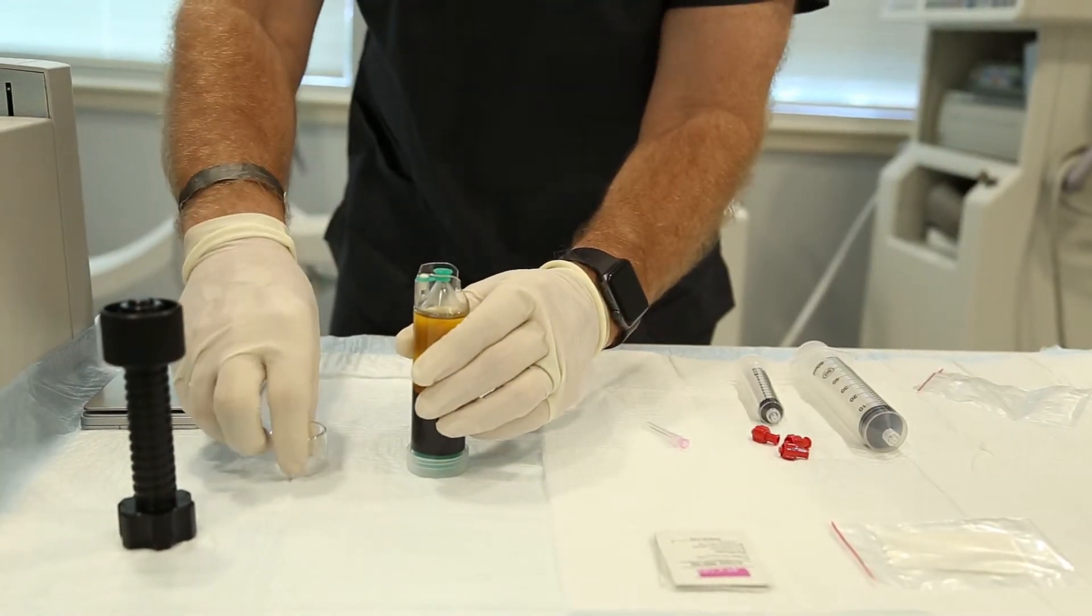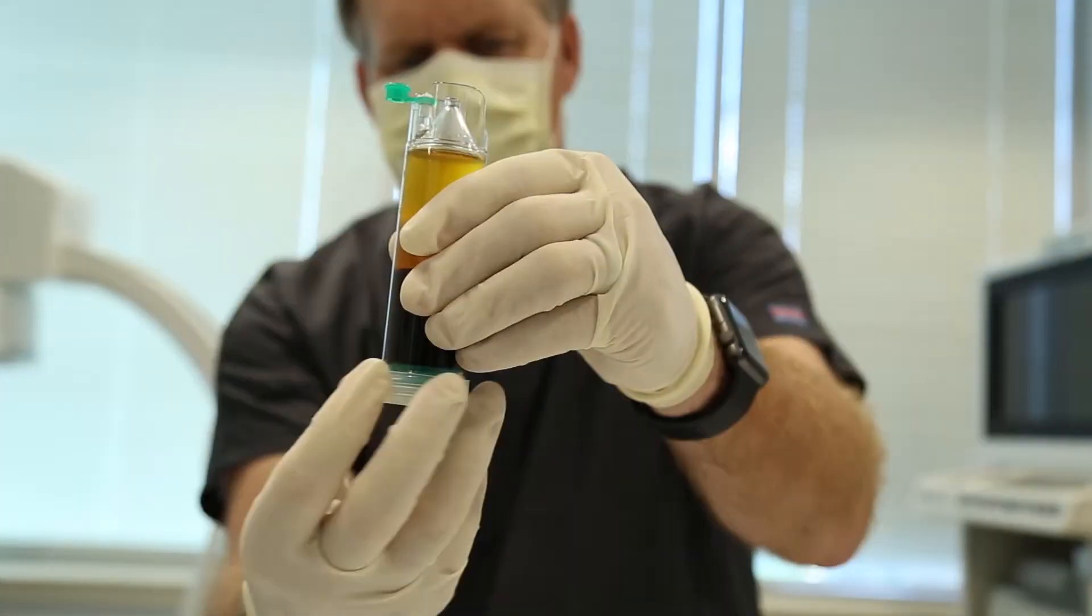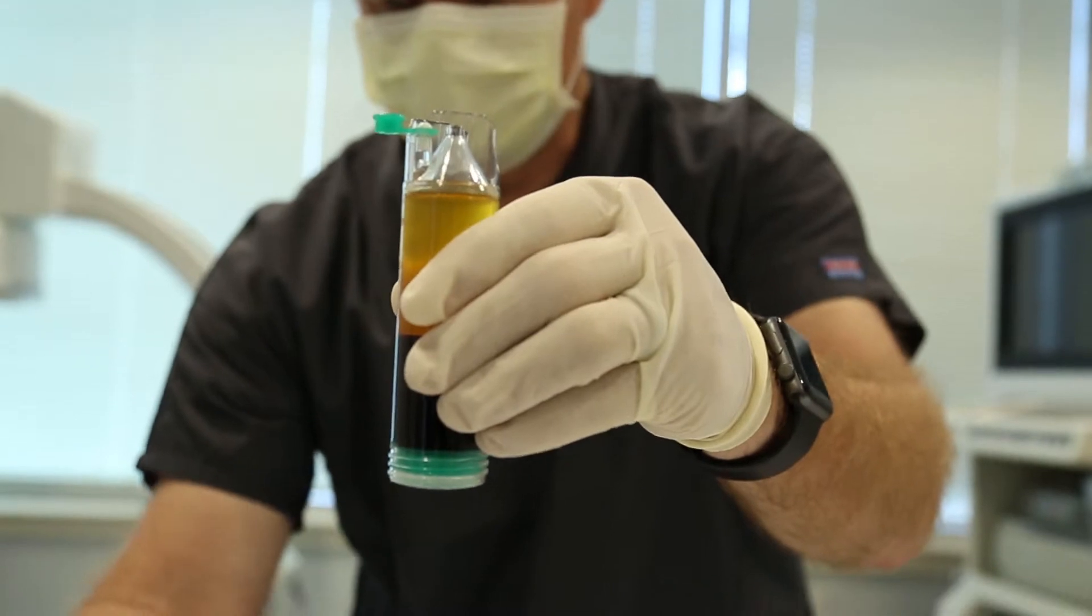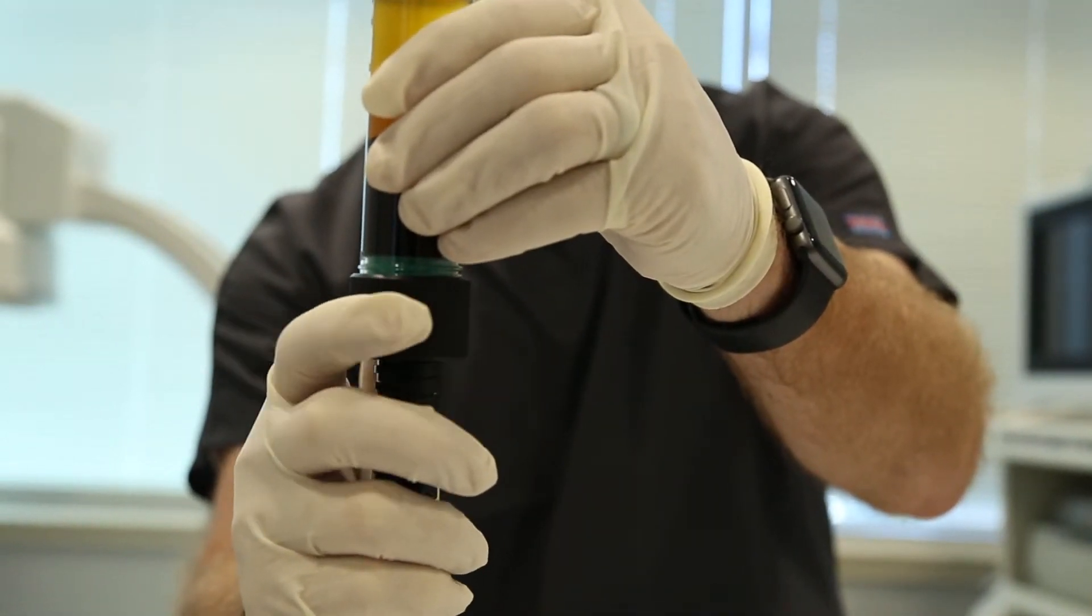Remove all caps. Keeping the XL concentrating device vertical, remove the plastic bottom cap and attach the lead screw device to the concentrating device.